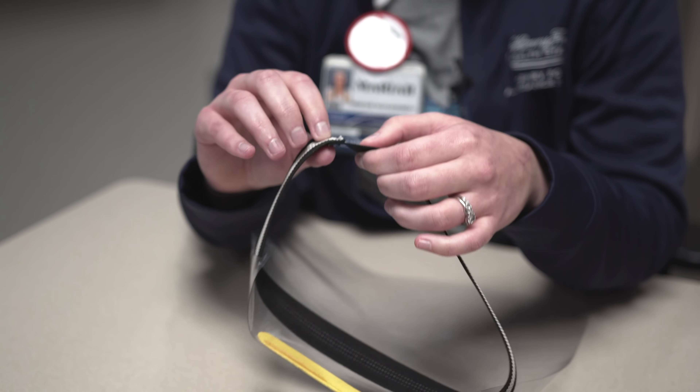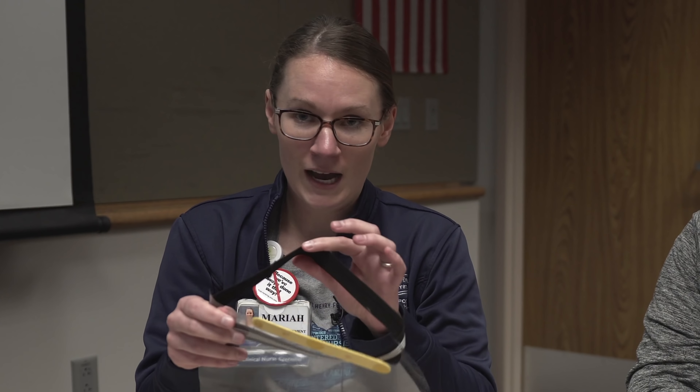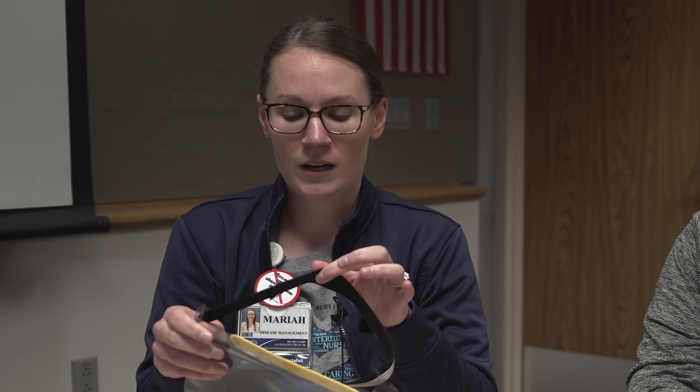While this is currently sewed, we will put clasps on to assist in the ease of this product for staff when patient scenarios arise. The snap will allow the elastic band to come out so that it can be bleached. In addition, the plastic portion can also be bleached to ensure that staff safety and patient safety is first and foremost.